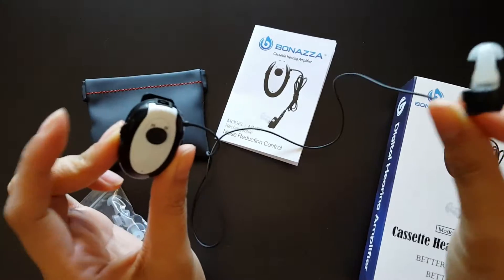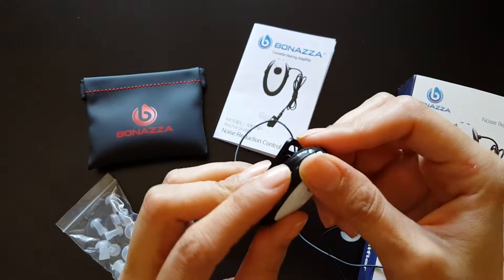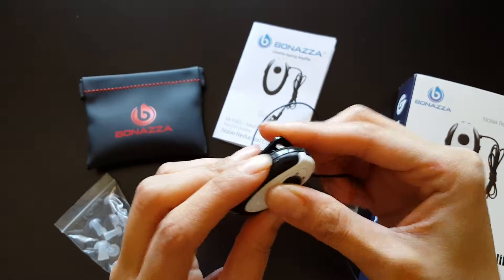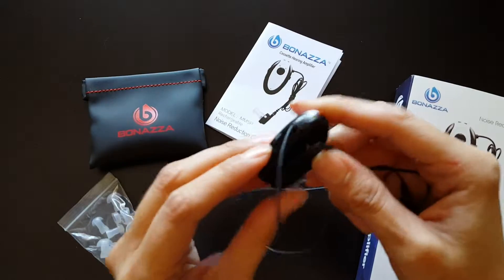This is what you get. You'll see there's an on and off switch right there, and then this is the volume if you need a higher volume. And then this is the little microphone — that's where it picks up — and it clips on right there.